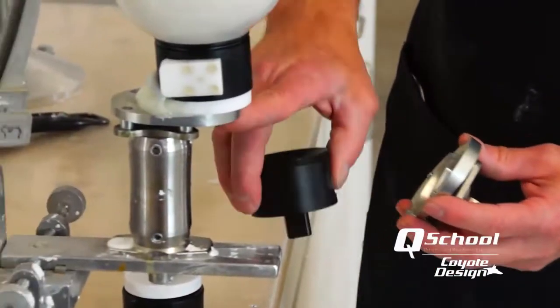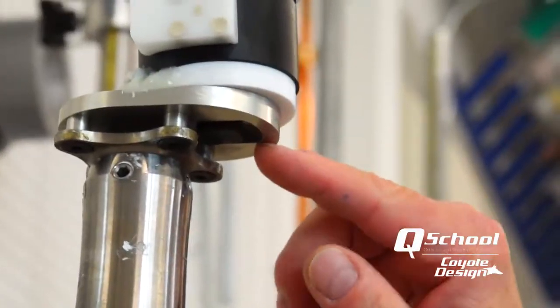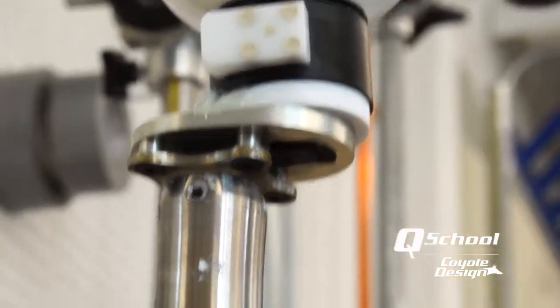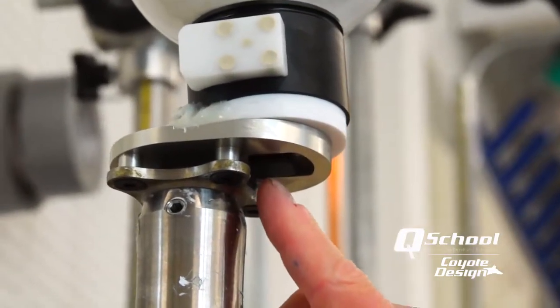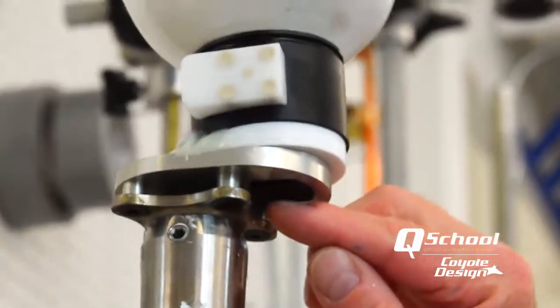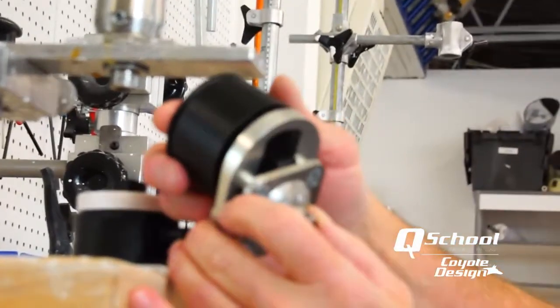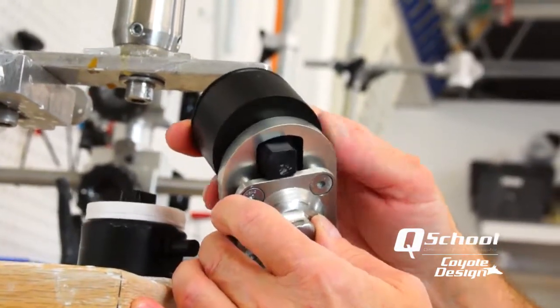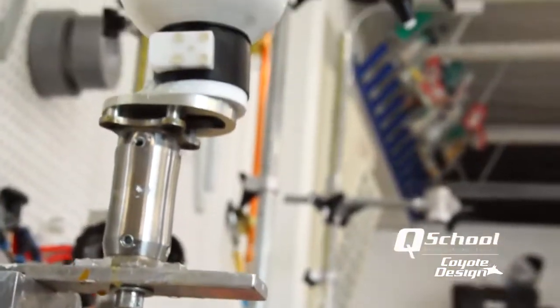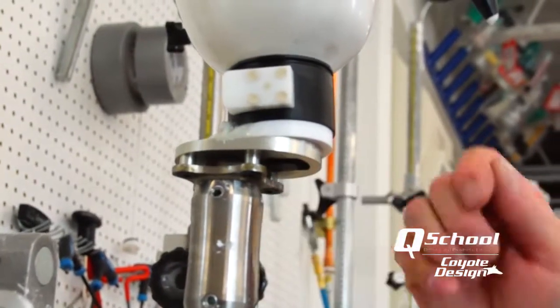On this one, because of the way it's set up, I want to go ahead and use my three washers and stand this off of the connector. And you can see, if we go back to this type of pyramid — this cloverleaf pyramid — I have plenty of room to come out of the end of this with the lanyard rope. Your pin should come right to the end of that lock. But if I put the same design in here and it hits the top of my pyramid, I can't even get my rope to come out the end of it. You have to have clearance of some kind. That's the key thing if you're going to use a lock in a lanyard system — make sure whatever adapter you're putting on, you can get that rope to come back through and have clearance.